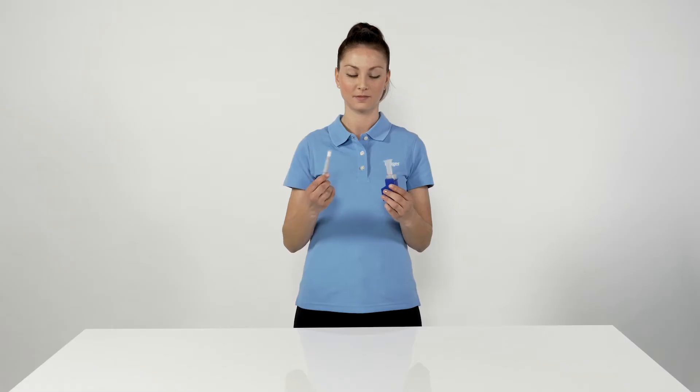To take a saliva sample, wipe the sampler back and forth for 10-15 seconds in the mouth, under the tongue and in the cheek pouches. The sampler must not be sucked or chewed in the process.